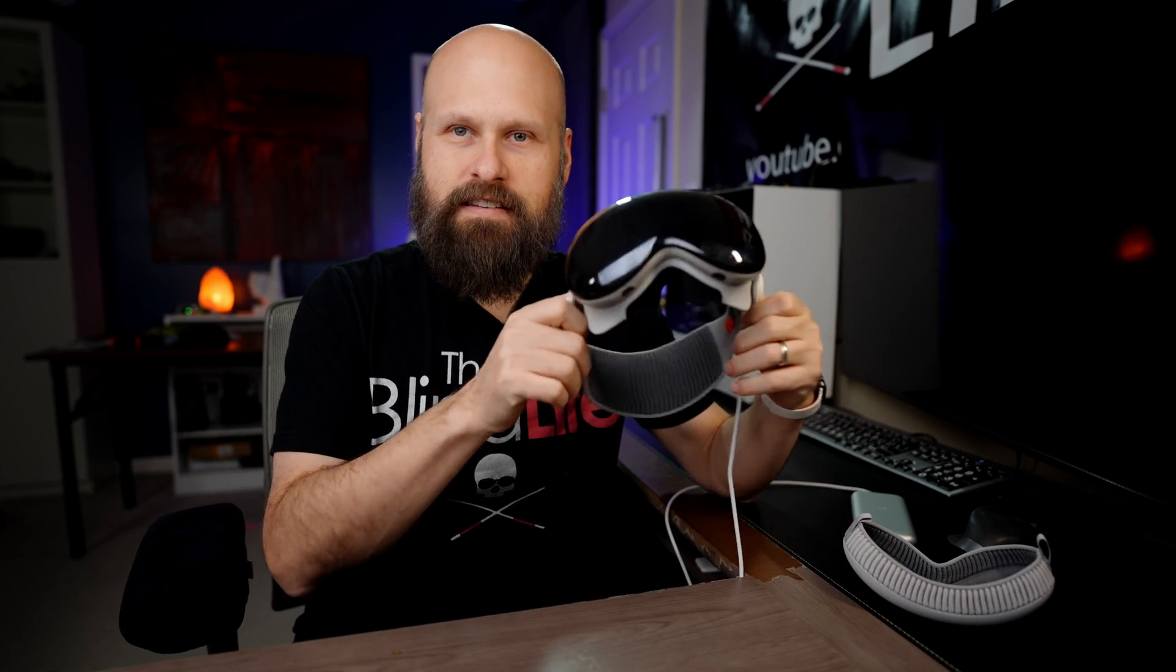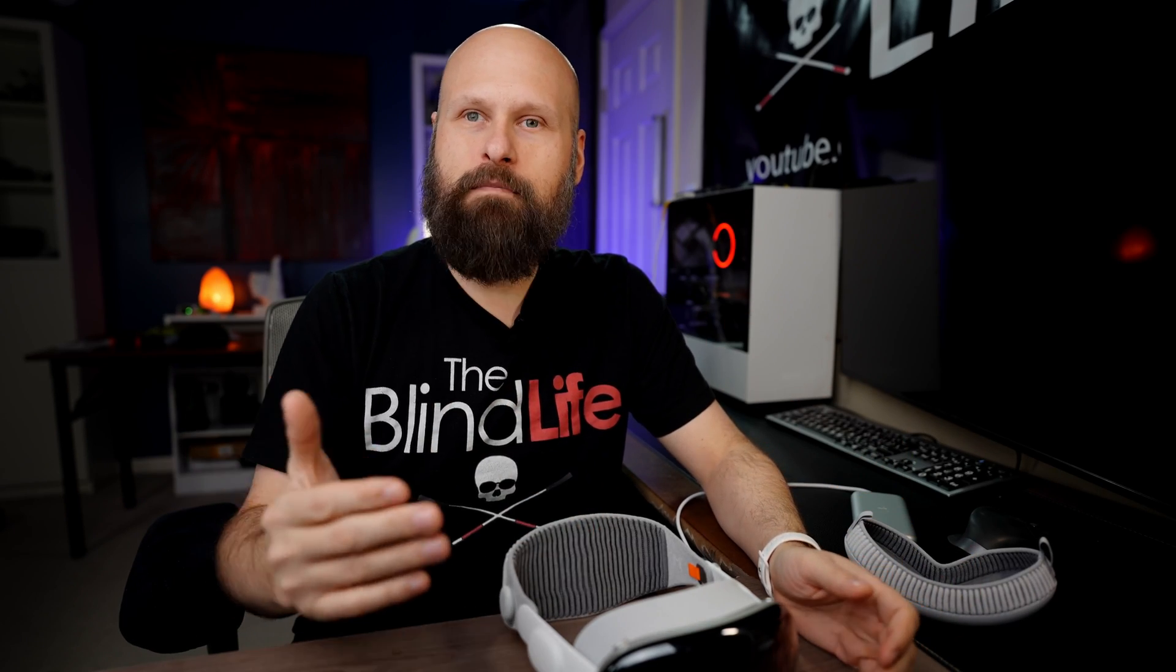I actually don't use the magnifier that often, so it just wasn't on my radar. I jumped into this headset and thought I need to turn on voiceover. But I definitely want to give equal time to those that might be utilizing this differently, using magnification and other ways to control it other than eye tracking.